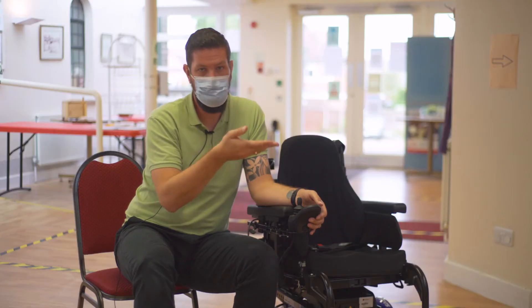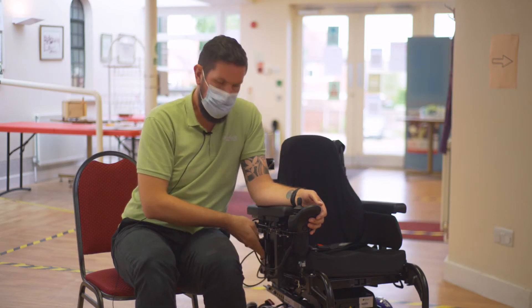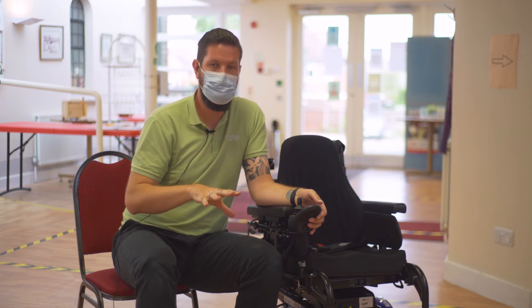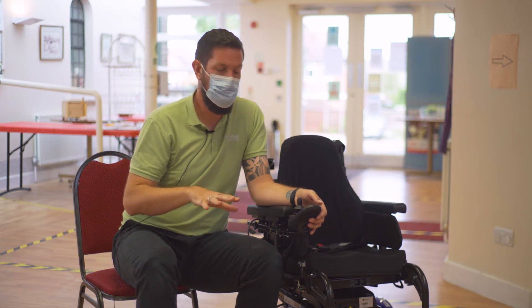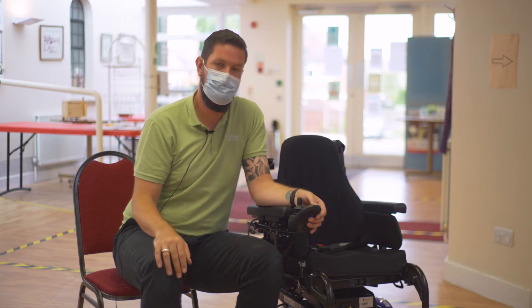This applies to the riser on the chair as well. If you have a riser fitted to your chair and you come up off the sensor fitted at the back of the chair, it will then put you into creep mode — just to keep you safe when you're driving. Take the chair right back down again, that gets rid of the flash and you're ready to go.